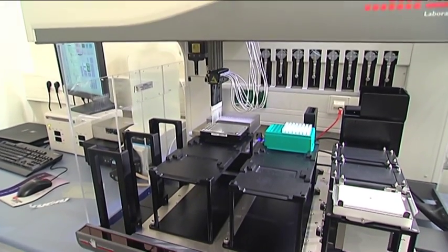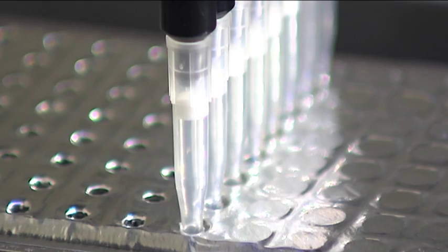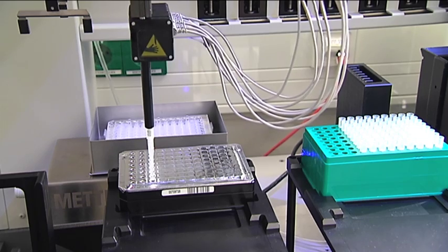After incubation, 10 µL of each lysis sample is taken to create pooled samples.